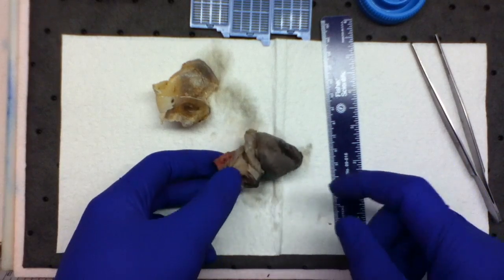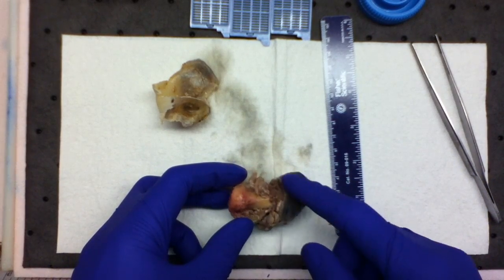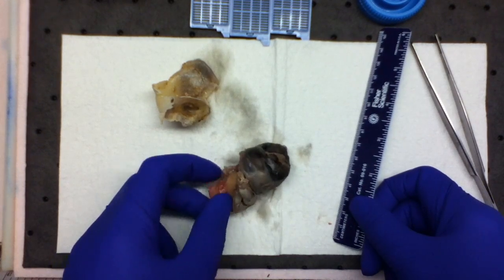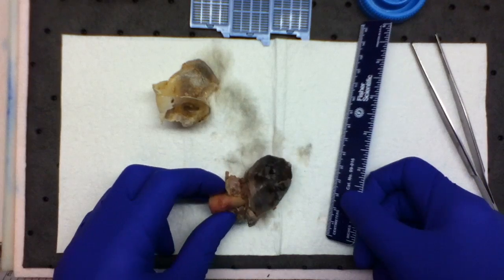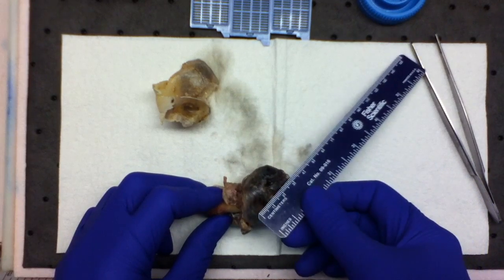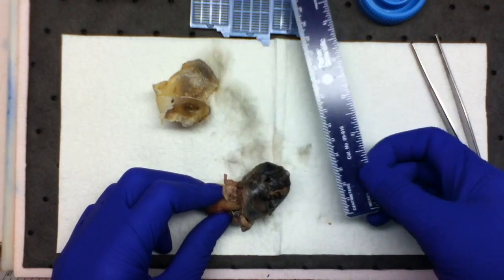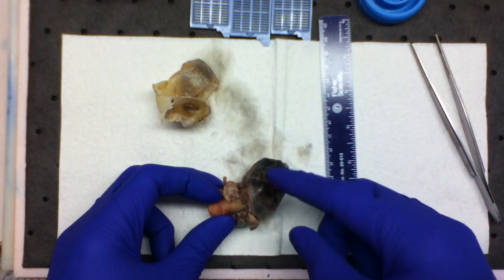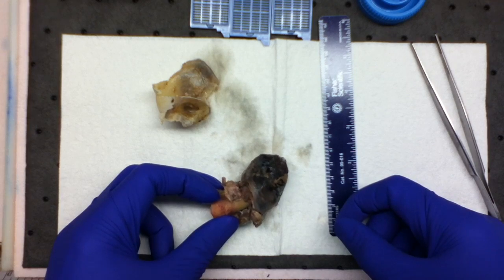The skin and soft tissue at the resection margin grossly approaches the gangrenous process that occupies approximately 80% of the digit, measuring 3.2 by 3.0 cm in greatest dimensions, occupying the entire nail bed, period.